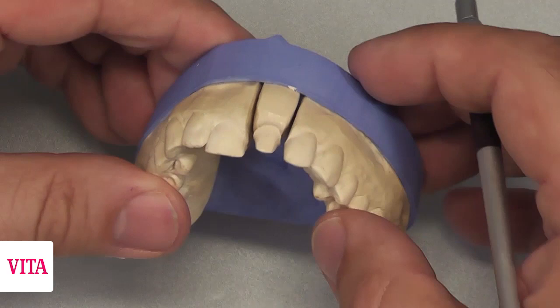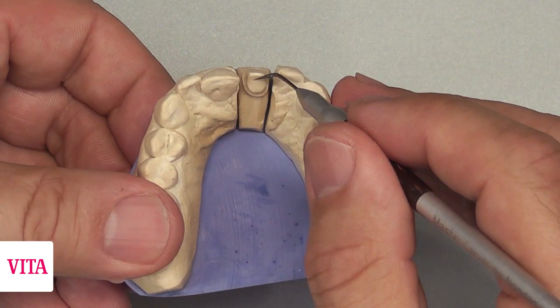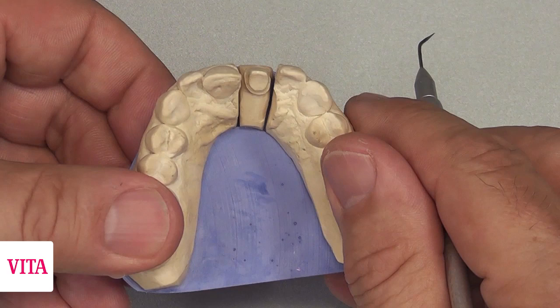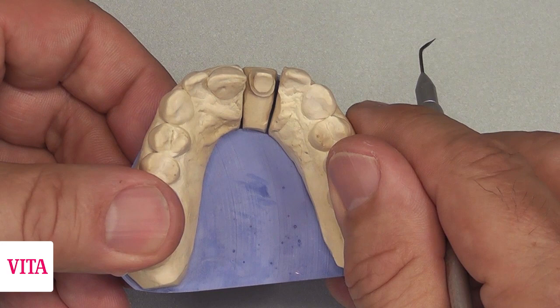Here we have the actual situation of the patient. We see the preparation from the dentist, and if you look closely at the incisal, we can see that the die is standing a little bit forward toward the labial side. What we try now is to mask this situation with the first layer — the luminaries on the opaque.